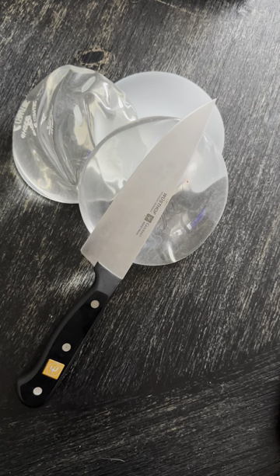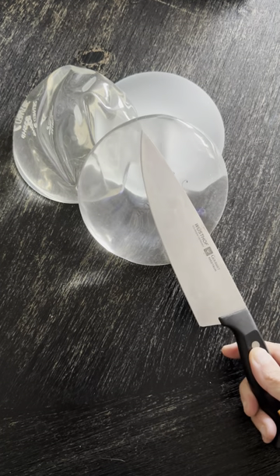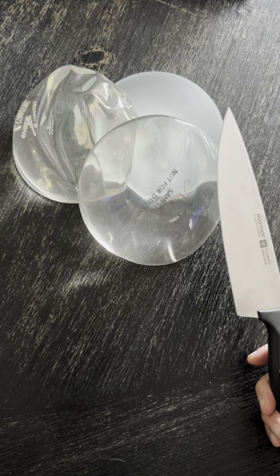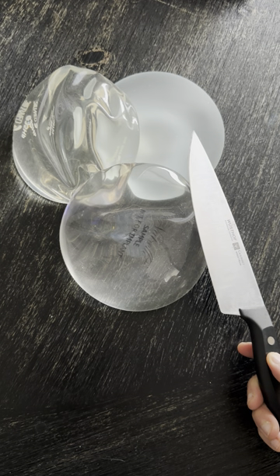Hi, this is Dr. Naidoo. In honor of the Thanksgiving weekend I thought we'd do something different — instead of cutting up turkeys, we're going to cut up some implants. This is something I've been wanting to do for a while. I did an implant cutting video a few years ago, but we now have a new implant on the market from a company called Motiva.